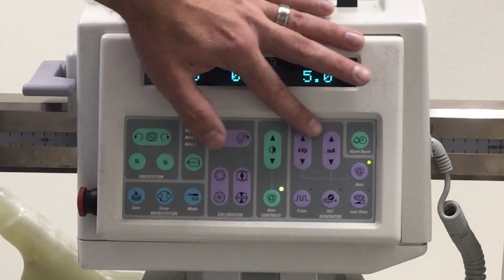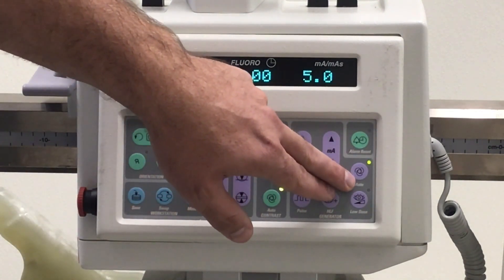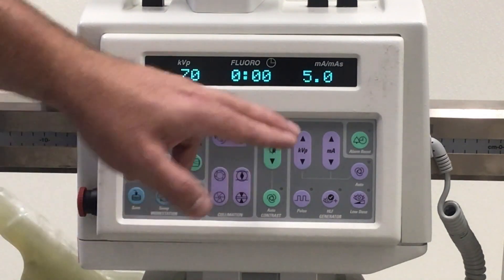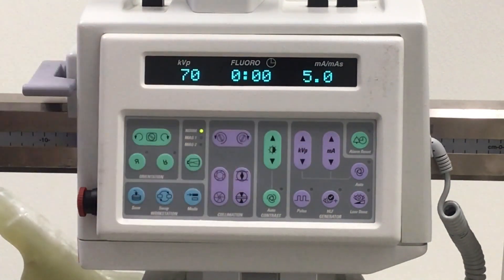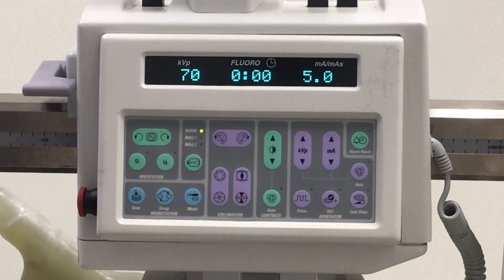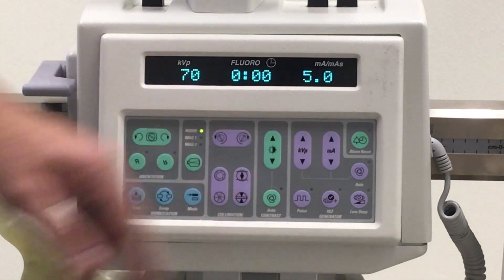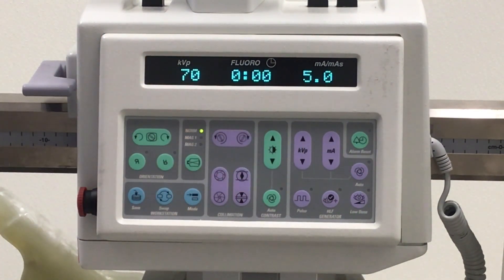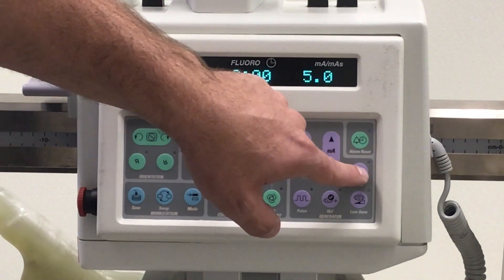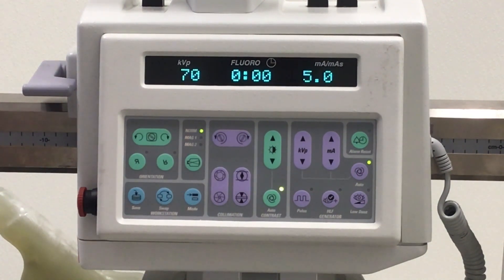On this system you can manually set your KV and your MA. However, you will need to turn the auto KV MA button off first. By doing this, you're able to set KV and MA to a technique that's working well for a given case, or adjust for certain patient pathologies. If you simply don't like the technique you've set, hit the auto button again and the auto KV and MA will revert back to the original setting.